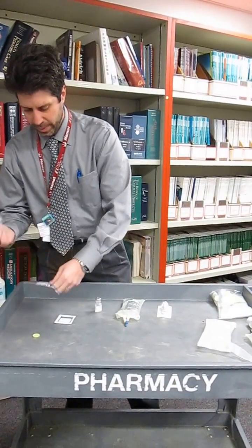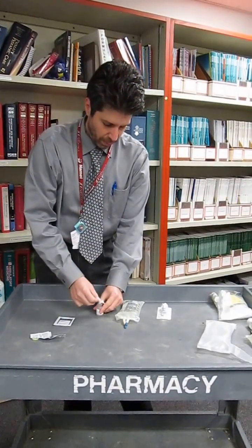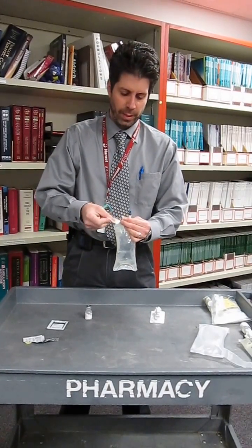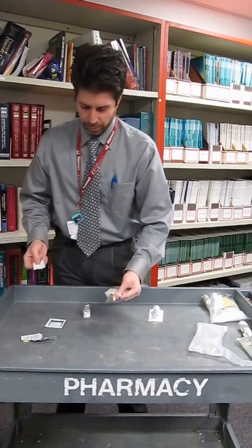Alright, take our alcohol wipe. We swipe three times in the same direction for the medication and then we swipe the additive port three times in the same direction for sterility purposes.